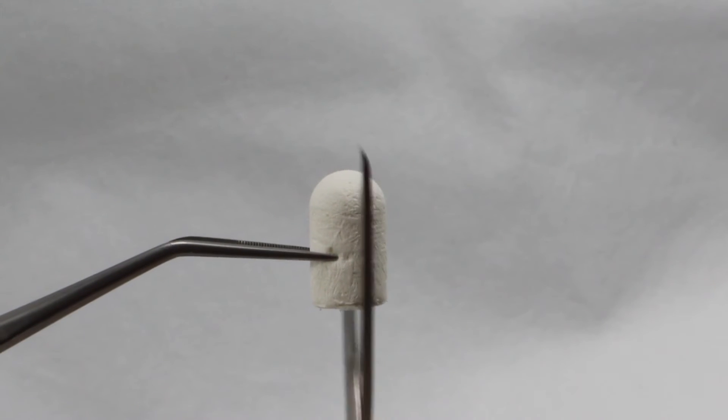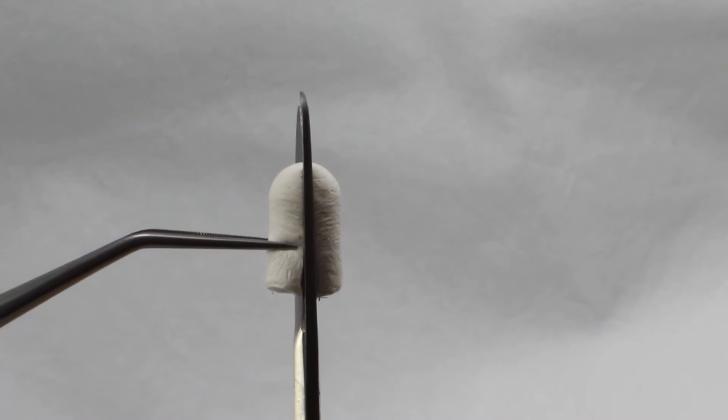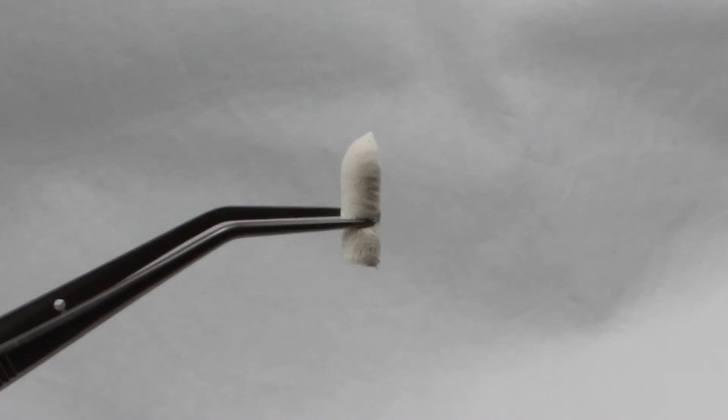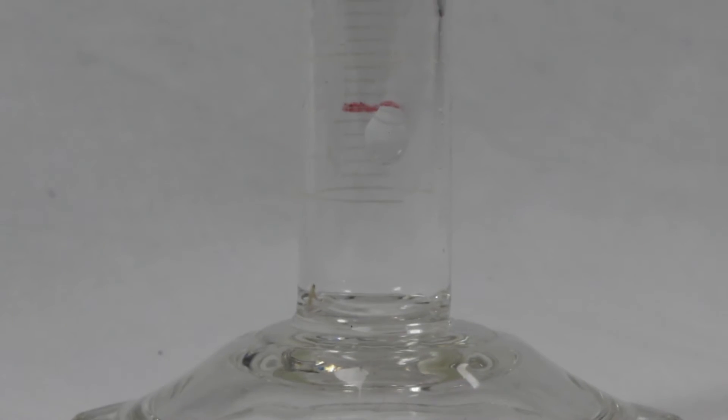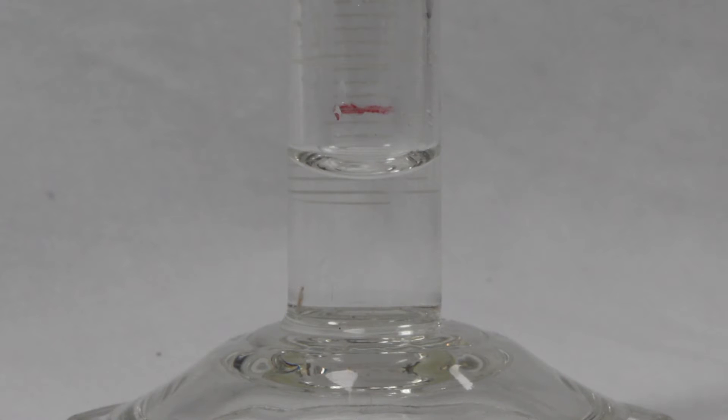While we offer two sizes of Osteogen Plugs, both sizes can be cut down to fit a specific defect and tailored to your unique clinical situation. We filled this graduated cylinder with water and dropped a large Osteogen Plug that had been cut in half to demonstrate that even the cut plugs will absorb and expand to fill gaps.